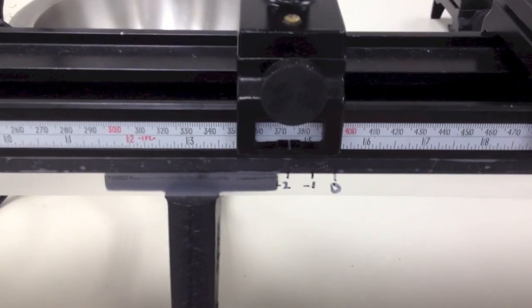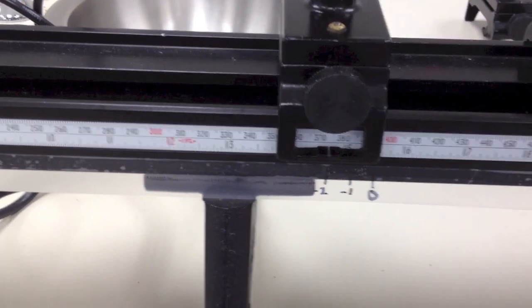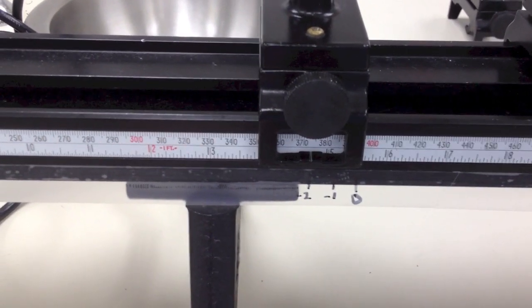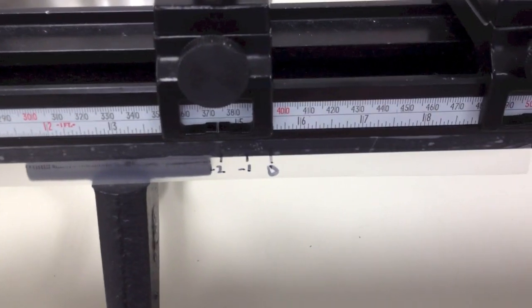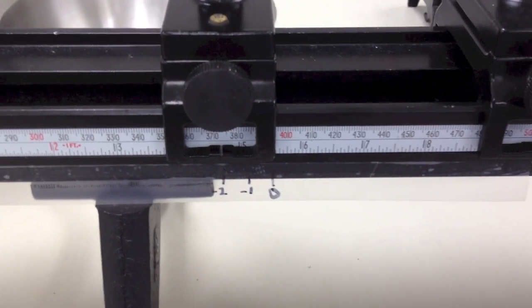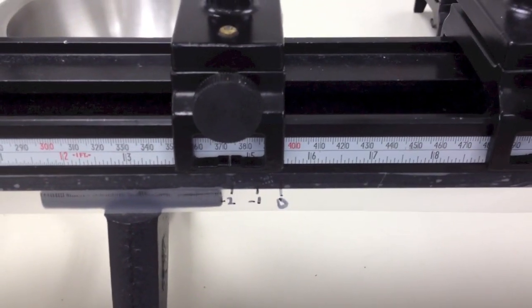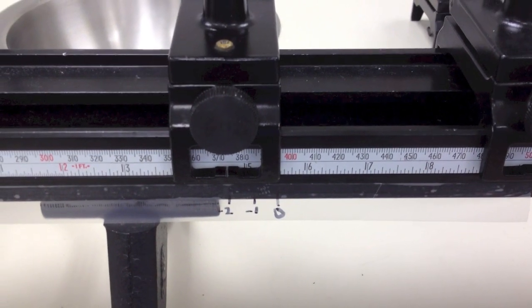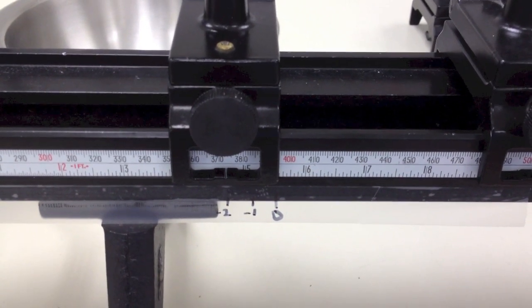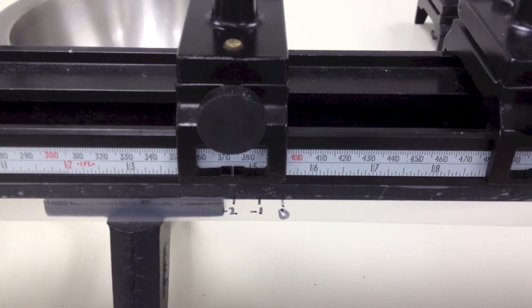So the next steps are to keep repeating that with a three, a four, a five, and a six lens, until you get it calibrated to about minus six, and then do the same thing for like plus one and plus two over here, so you can get some calibration readings. And then you'll put an unknown lens in there that your partner will give you, and you'll try to figure out exactly what the power is based upon where the target position ends up.